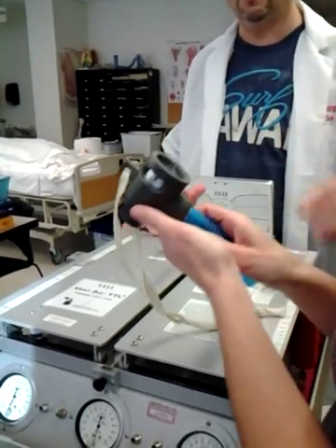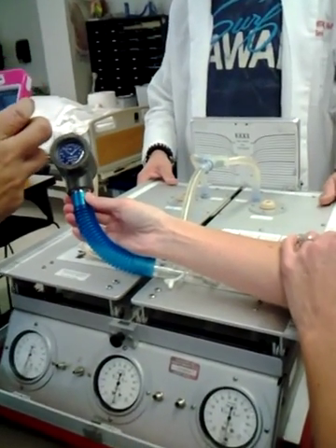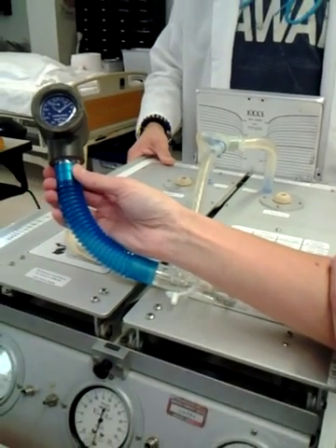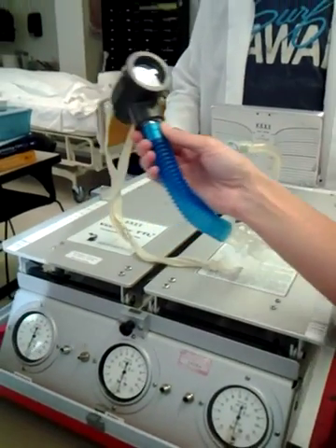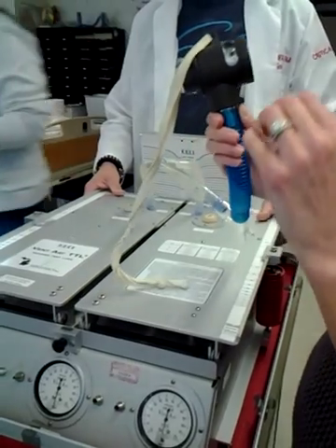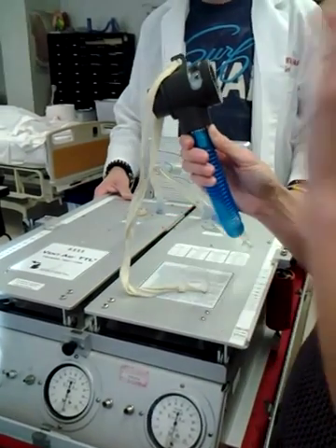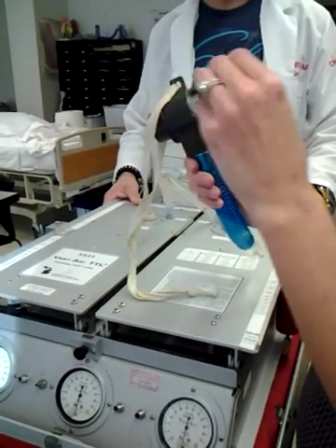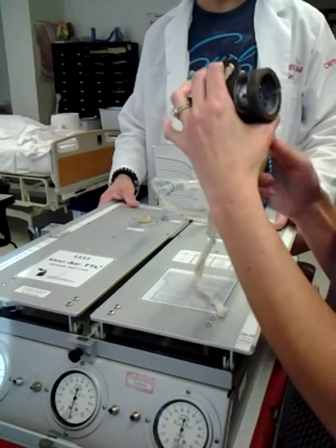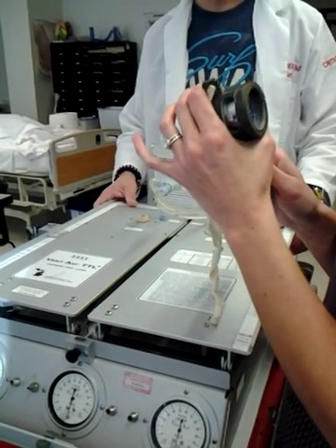So you divide — that's your minute ventilation, divided by your respiratory rate, to get your tidal volume. Divided by your respiratory rate. Okay, so that will give you your tidal volume.